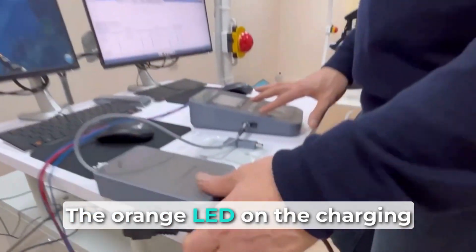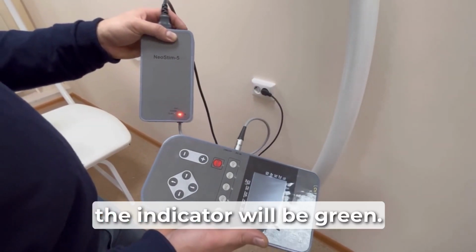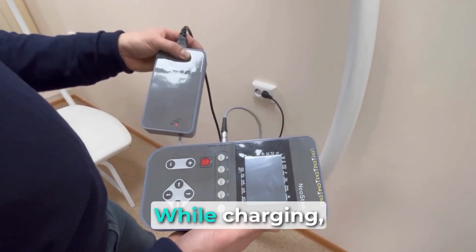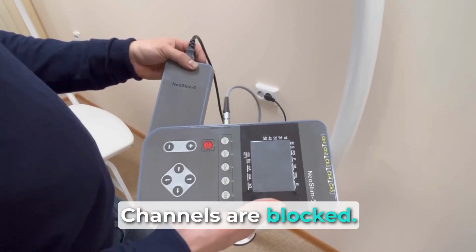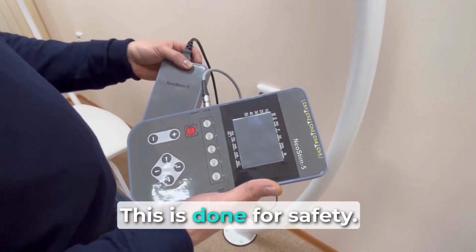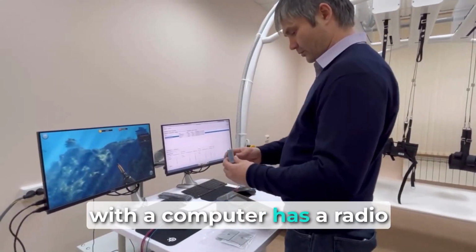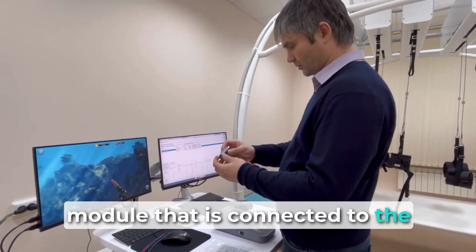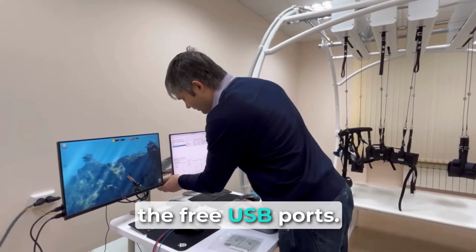The orange LED on the charging unit lights up. When fully charged, the indicator will be green. While charging, it is impossible to work with the stimulator. Channels are blocked. This is done for safety. The stimulator for communication with a computer has a radio module that is connected to the computer with the complex control program in any of the free USB ports.